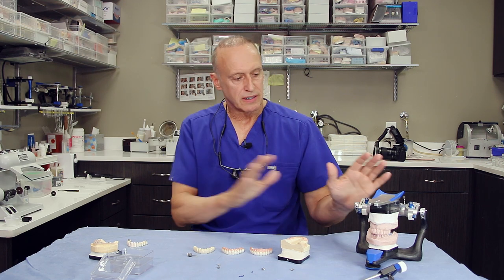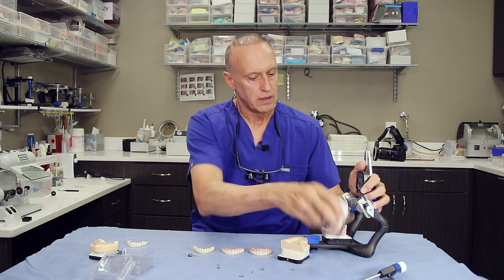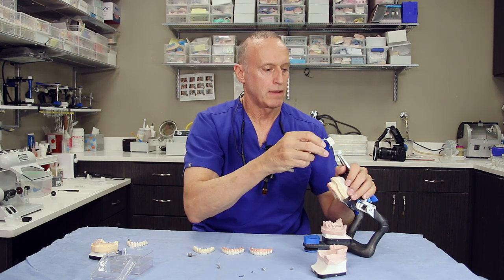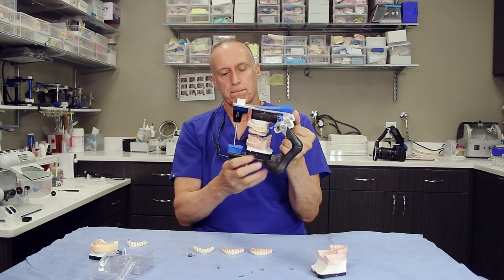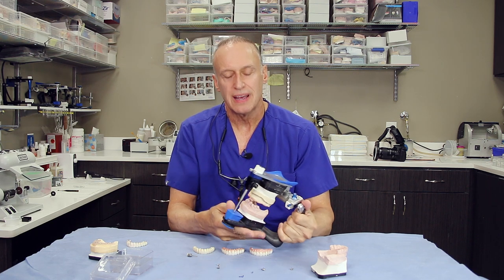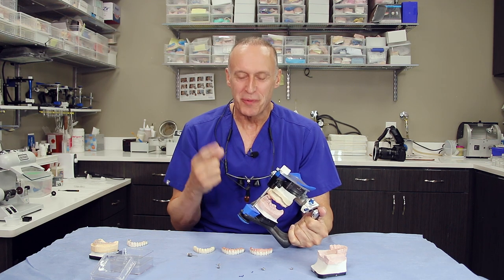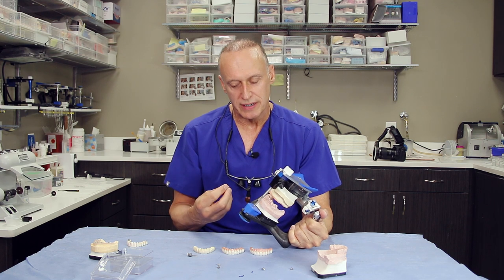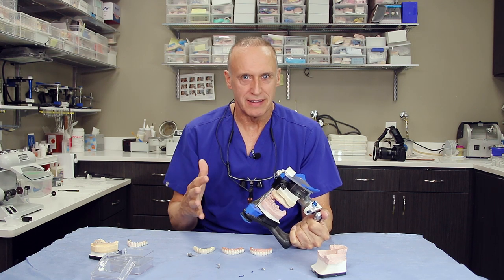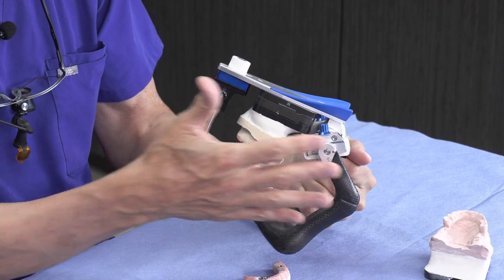I wanted to go back to the case I started with — this gentleman's case. We go through a series of what we call records. We generate a master cast and we also put those models on the articulator. There's a series of impressions and records and try-ins that have to happen for us to make this prosthesis as perfect as you want it and as perfect as we want it. Many times I want it more perfect than the patients and it frustrates them, but in the end everybody's glad that we're as picky as we are. This is after the case has been mounted or articulated on the articulator.